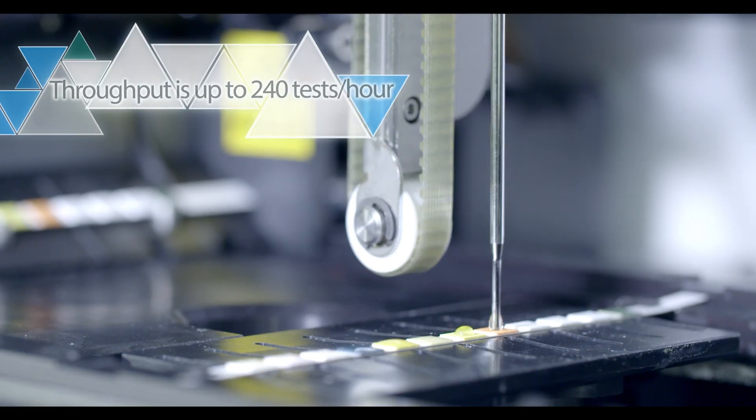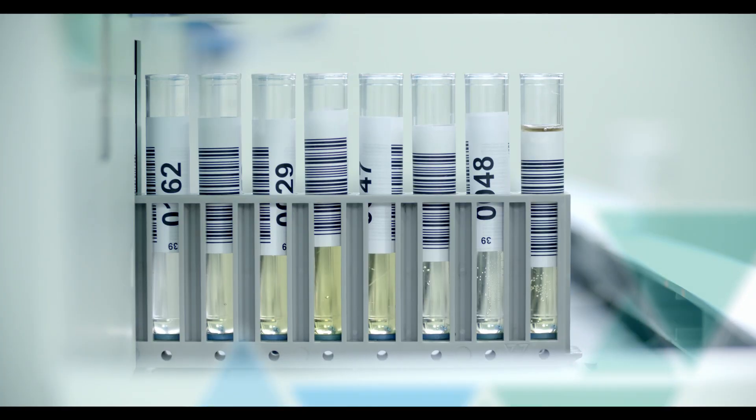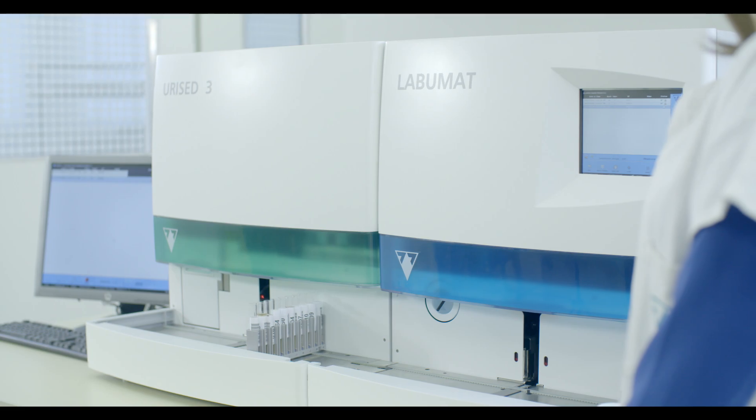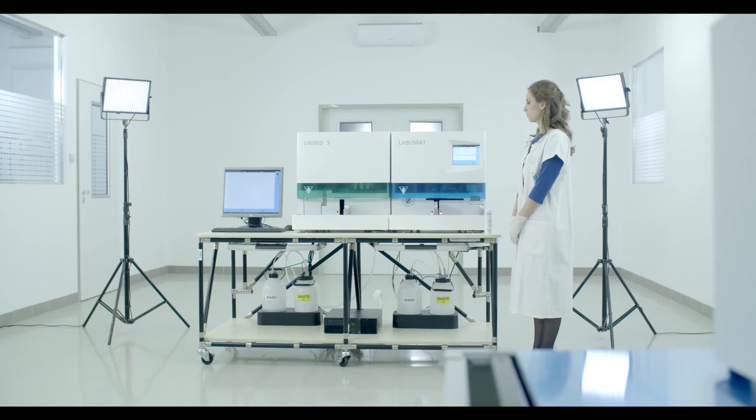Phase contrast microscopy offers never-before-seen clarity and improved identification of particles that conventional bright field microscopy cannot easily detect.